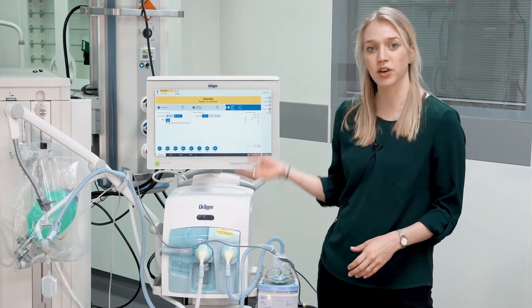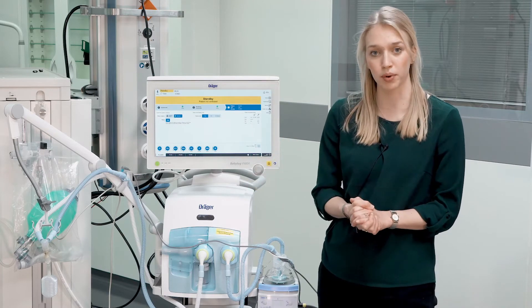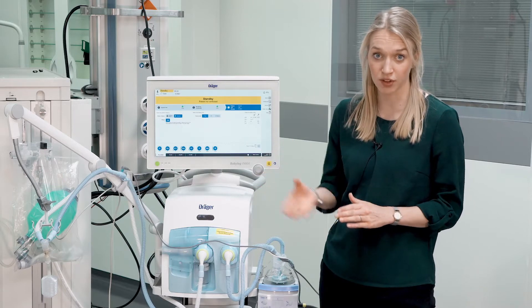In this video, we will demonstrate how to admit a new patient and to adjust ventilation settings during operation with BabyLog VN800 and VN600.